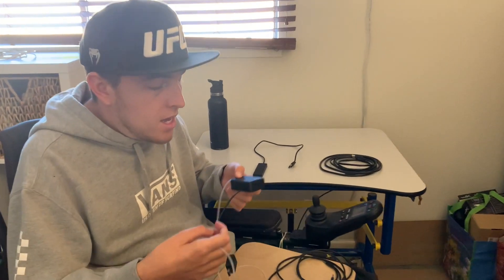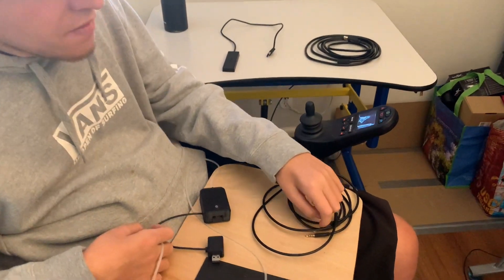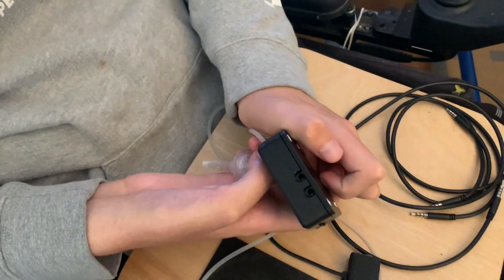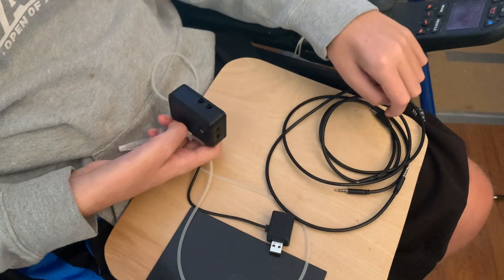This is what the device looks like — when you order it, it comes with this box and these two other cords that you plug into the box on this end. You plug these cords in here, and the other ends of the cord I plug into my adaptive controller.